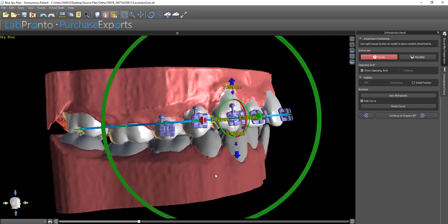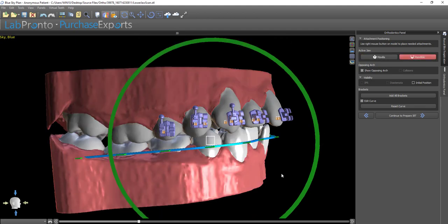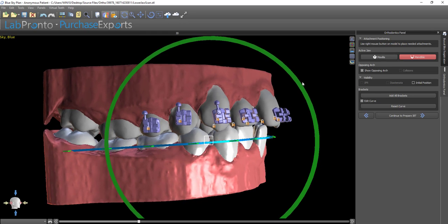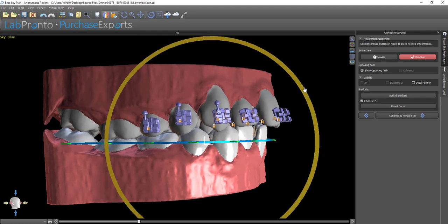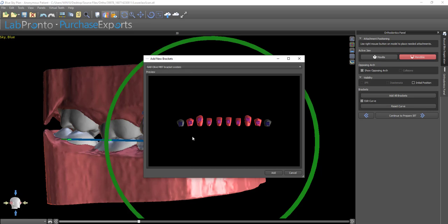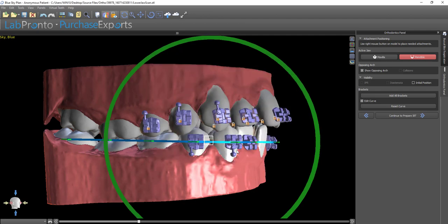Once we've finished the process for the maxilla, we left-click on Mandible in the top right and repeat the process of aligning the curve, then click Add All Brackets and select the relevant bracket system from the drop-down list. As a side point, if you shift and left-click, you can deactivate any tooth or several teeth, so brackets for those teeth will not be added. Holding down Shift and left-clicking again will reactivate them. Clicking Add will add all the brackets, and we go bracket by bracket, positioning each one in the center of the tooth.